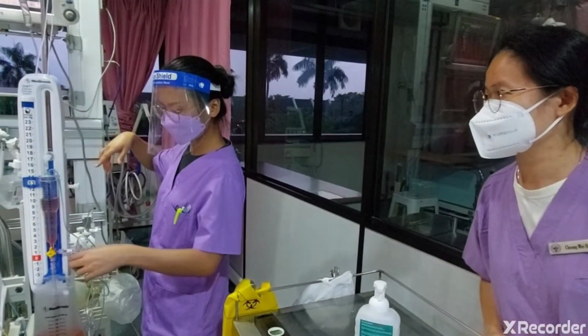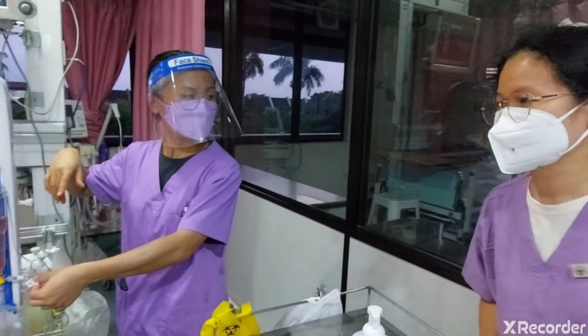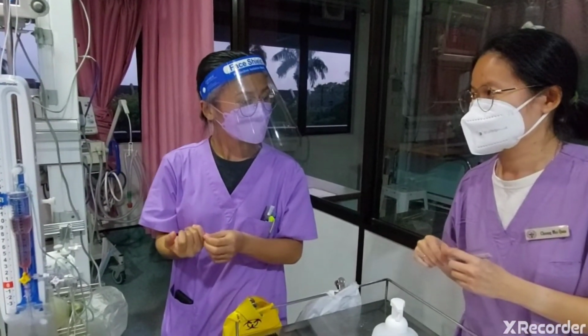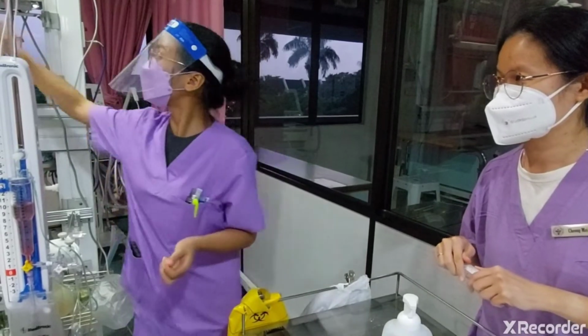Do you have any questions to ask me regarding this? When to do the zeroing? Actually, anytime when we do turning for the patient, to position the patient, we need to do zeroing. The second time is when we take over from the patient, when changing over shift, we need to do the zeroing.